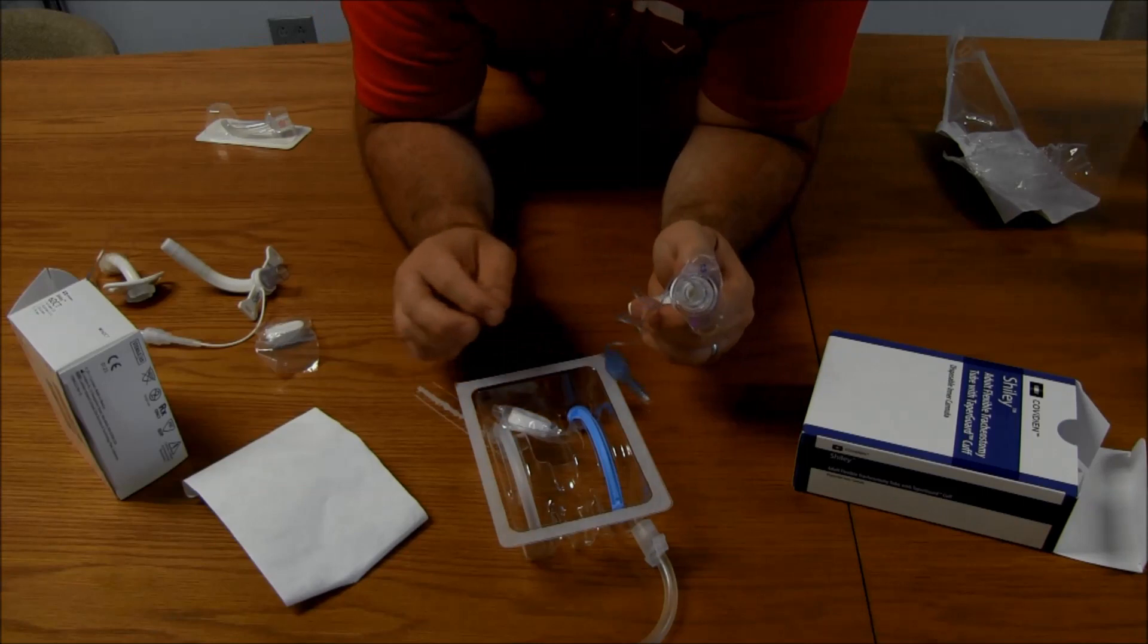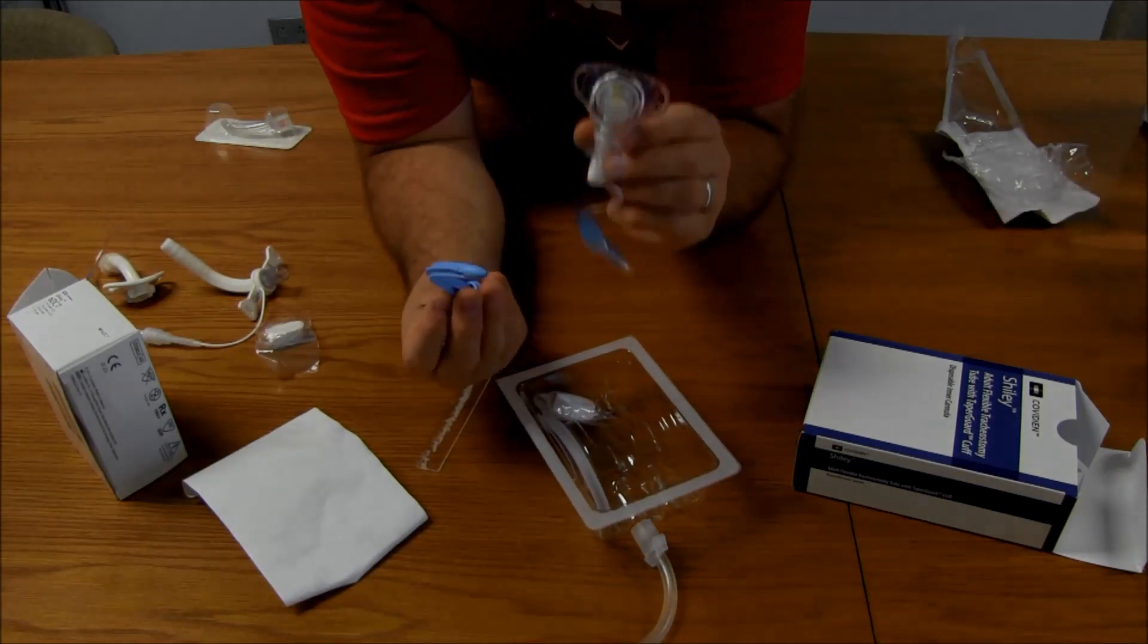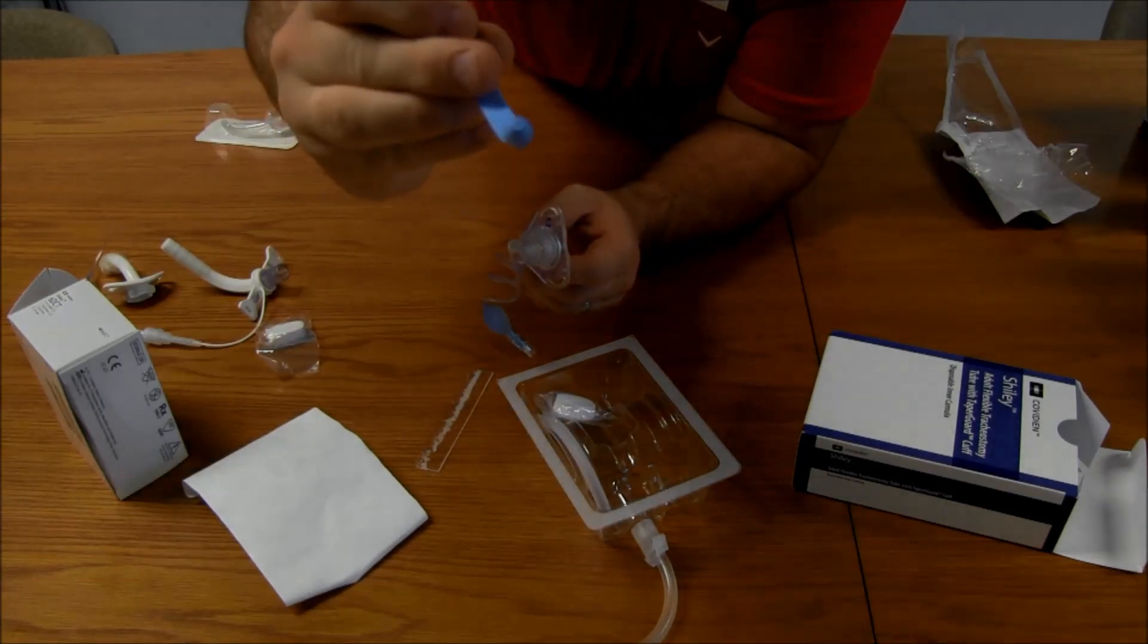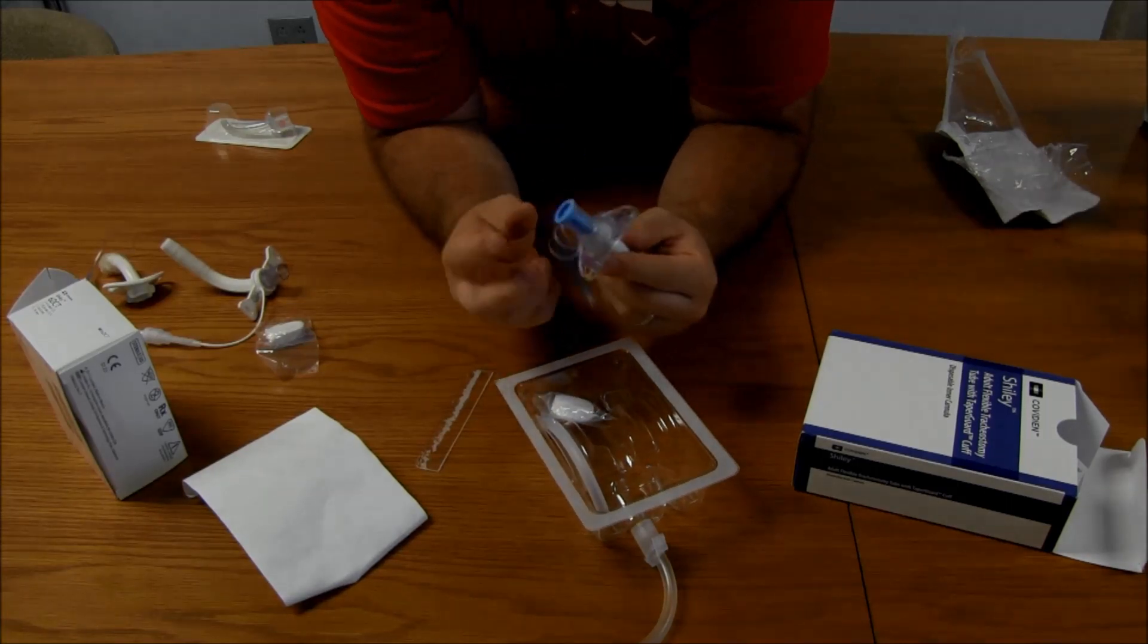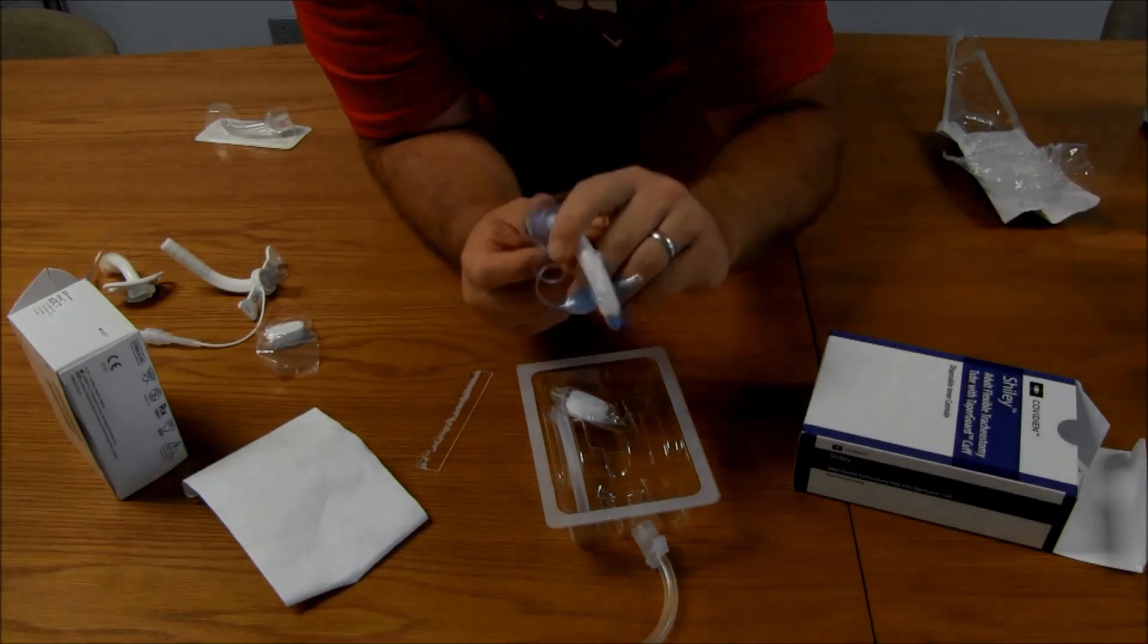And I'll inflate this cuff in just a second. So, the next thing we're going to look at is our introducer. Very similar to the previous. If you can see it, it's got kind of holes in here. A little hole down here. But it, of course, would go in, clip into place, and that is how we would insert it. So, we'd use it that way to insert it.